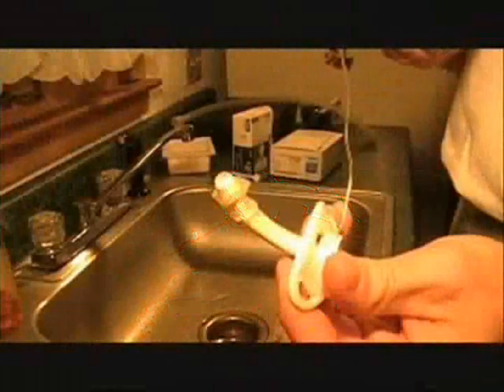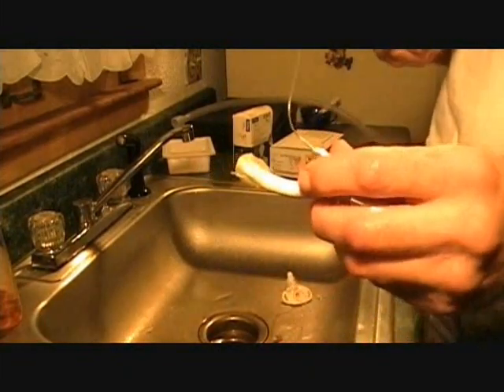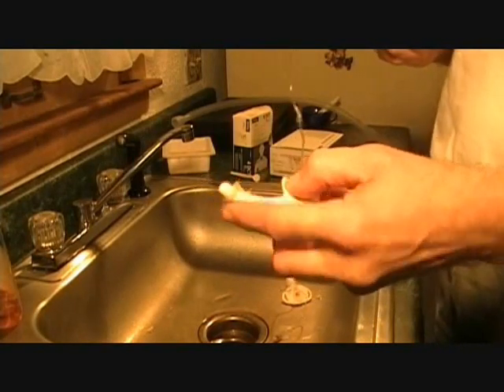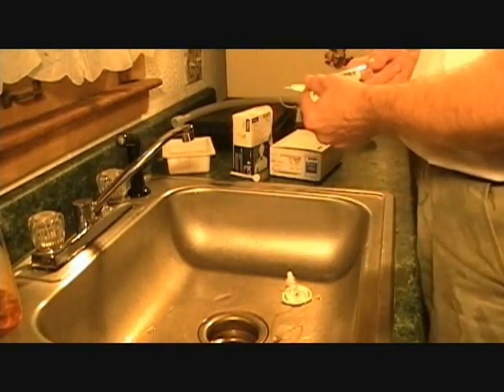What I'm holding up here is what I call a dinosaur — a tracheostomy tube with what's called a low pressure cuff. You can see this big nasty bunch of plastic around the shaft; that's called a cuff. You can see how it sticks out, gets in the way, and you can bet mucus collects on that and makes it very difficult for someone to talk. Interestingly, I saw Chief Justice William Rehnquist wearing one of those when he was still walking around a few years ago.